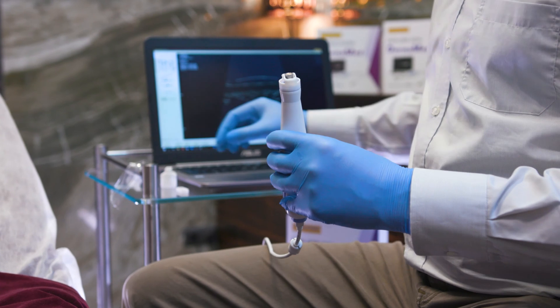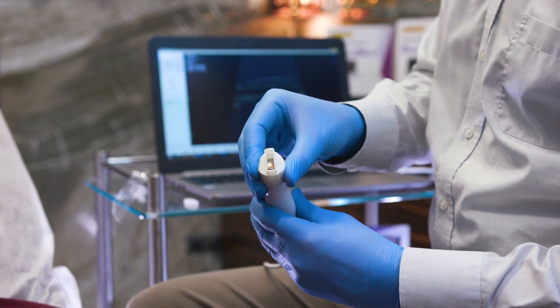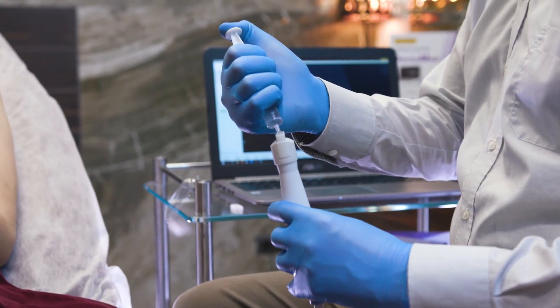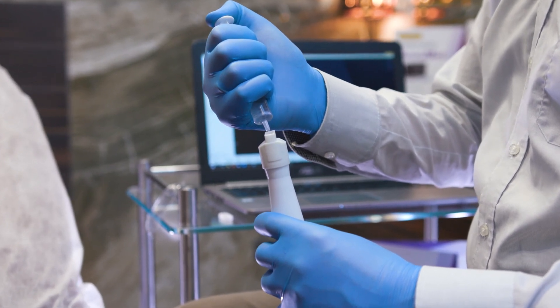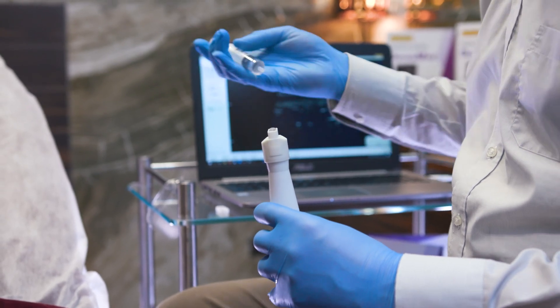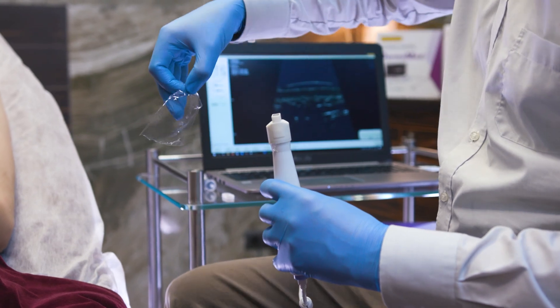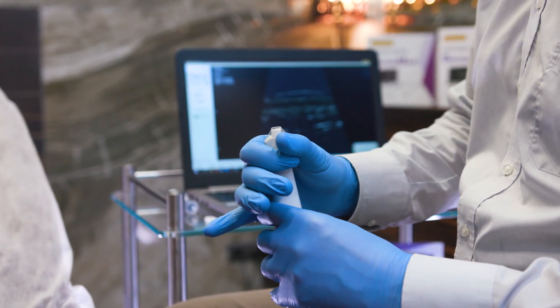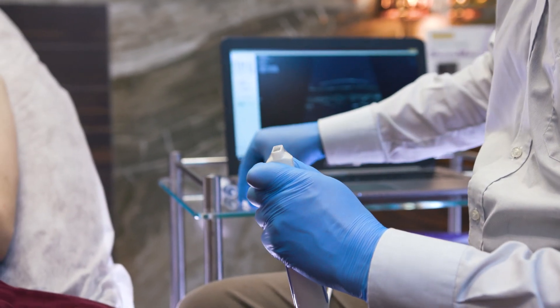I will now show you how to get DERMAMET ready for work. First, we put the spacer on, and then we top it up with the demineralized water. On top we put a piece of foil which was already prepared earlier, securing all with the frame.